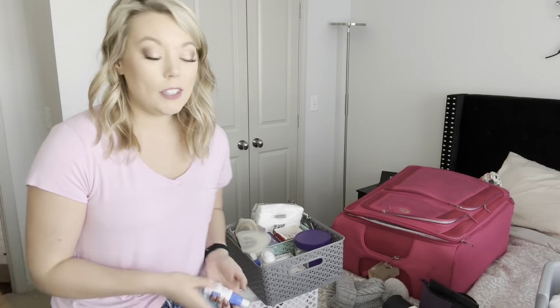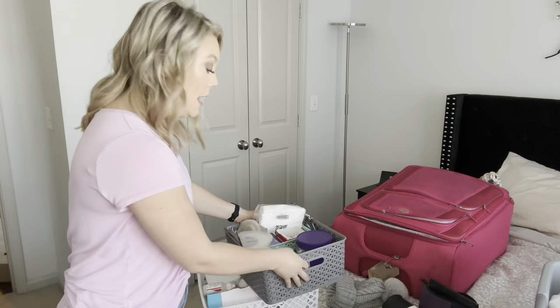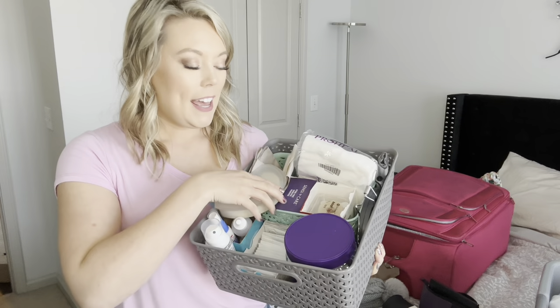I've definitely flown before, and you can totally take your supplies through TSA and have them in your carry-on. I actually recommend that you do have them in your carry-on because you never know what can happen even in an airport — leaks are unpredictable and sometimes you get stuck. Anyway, we're gonna go through how I typically organize my daily ostomy supplies.